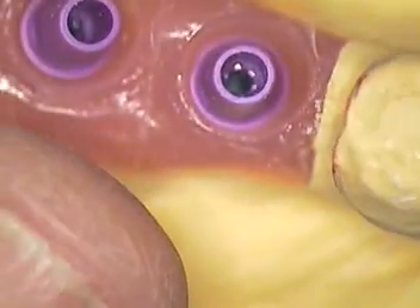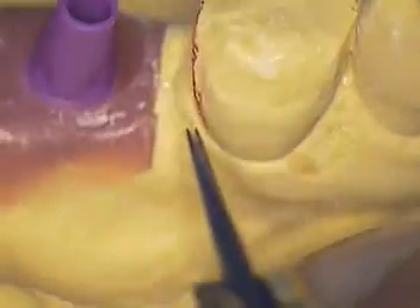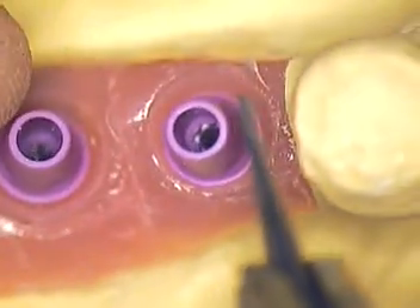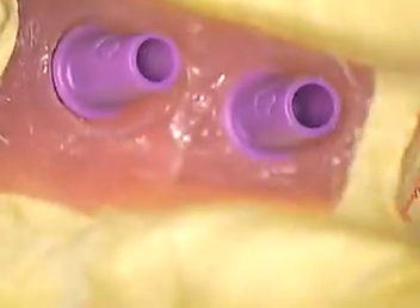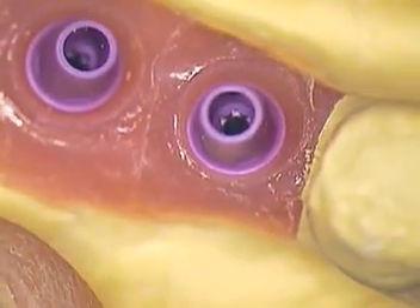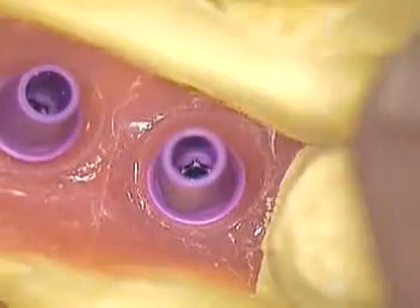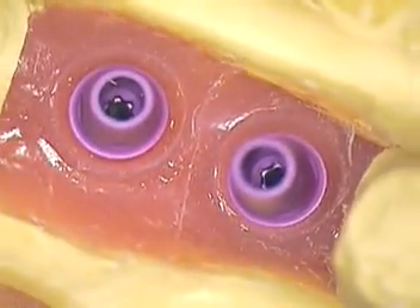You can either choose from their meso abutments or go ahead and make a custom. We're going to do a combination — custom abutments on both, make them singles, and we'll probably end up shaving a little bit off of this crown on the distal aspect so that we can get better alignment with both. The cost differential here is roughly about $20 difference on the parts, and then laboratory costs are going to be higher because you have to introduce more metal with the custom abutment. Another place to look at would be Atlantis — I believe their abutments are a little more reasonable.